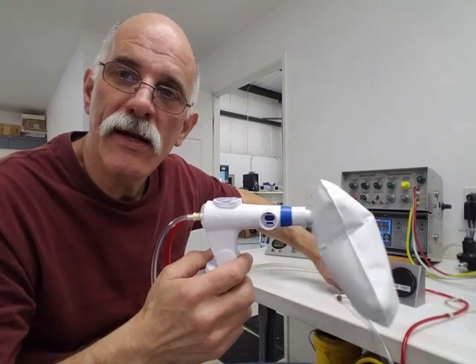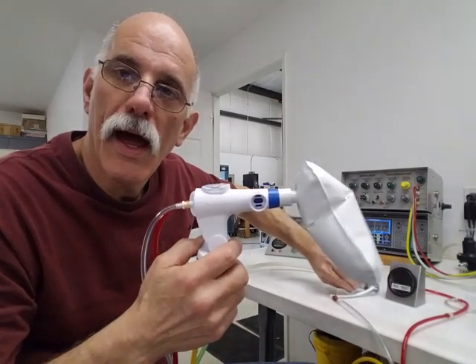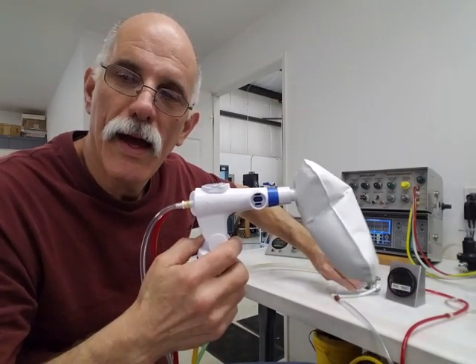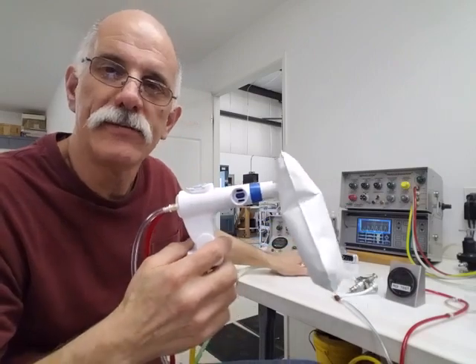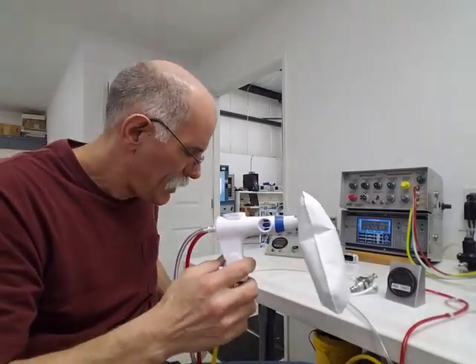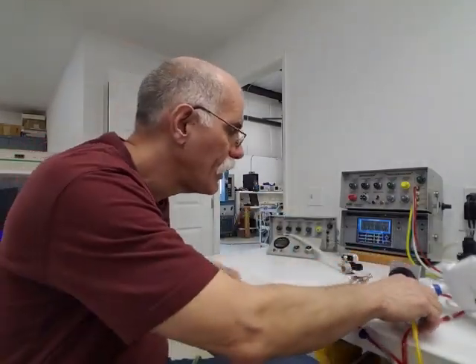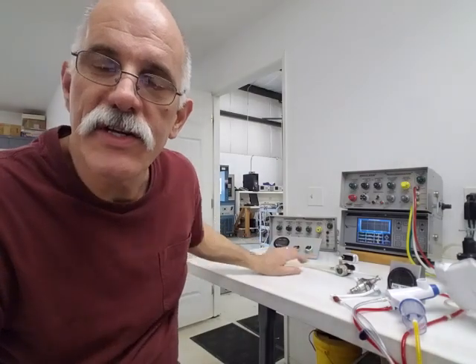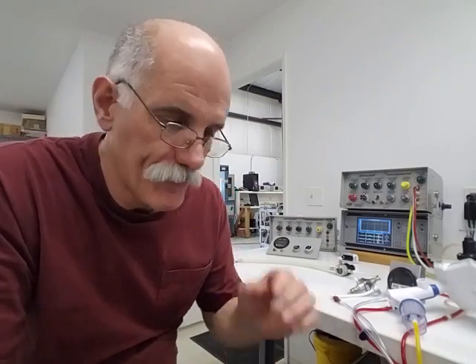I can adjust the speed and I can adjust the pressure. The advantage of this system is the parts are simple, they're easy to deploy, and you can make thousands of them in a very short period of time.